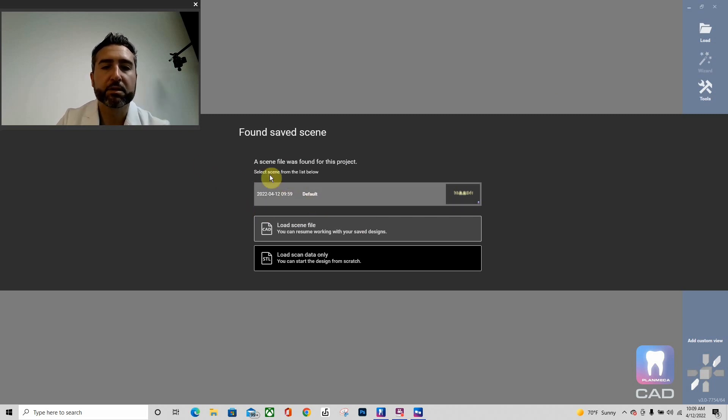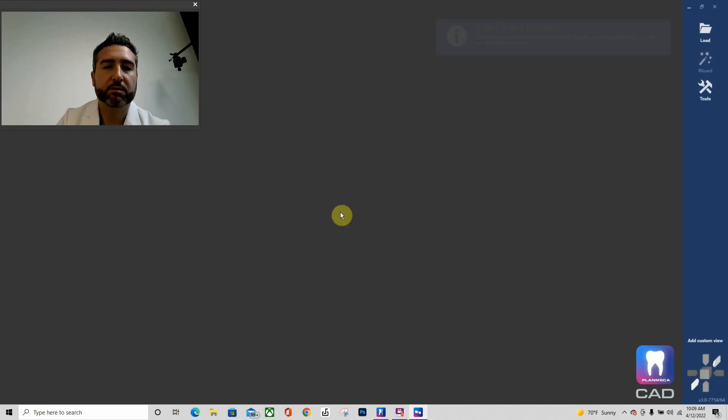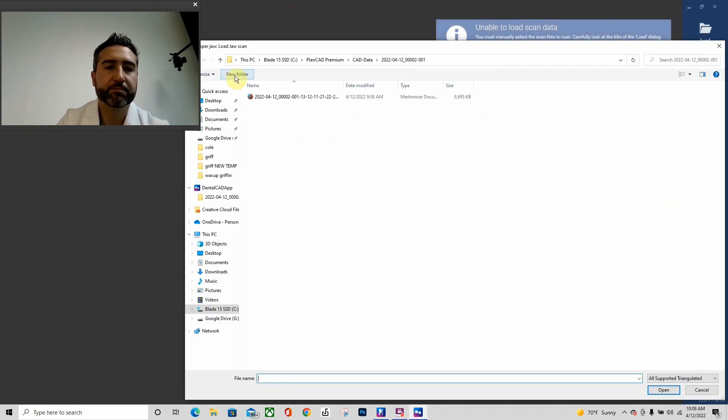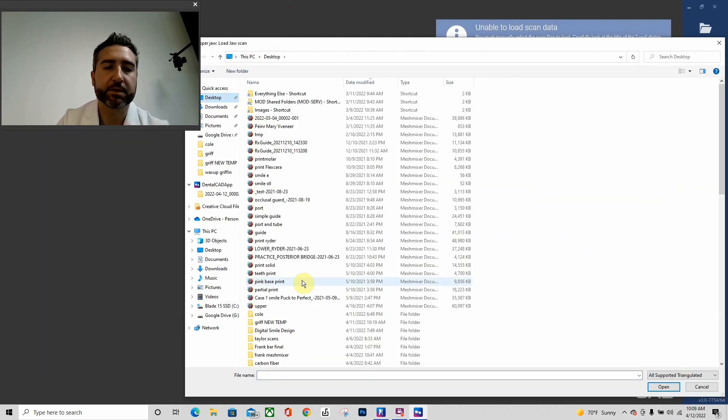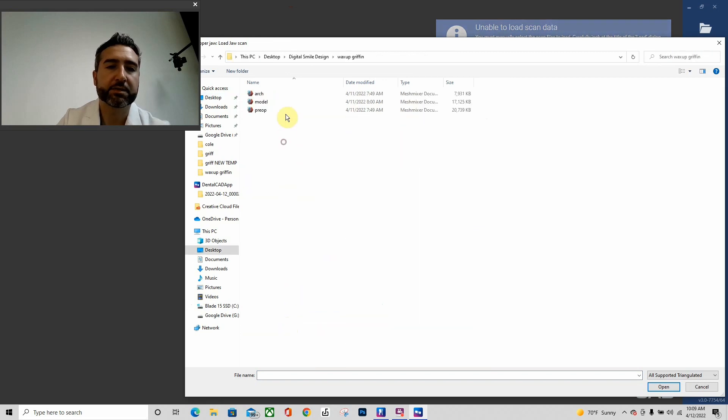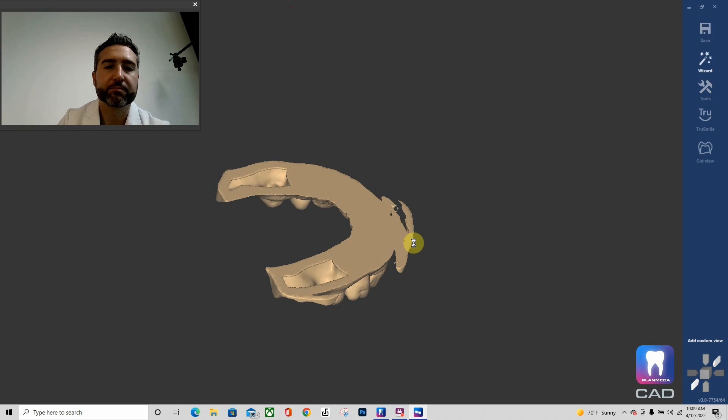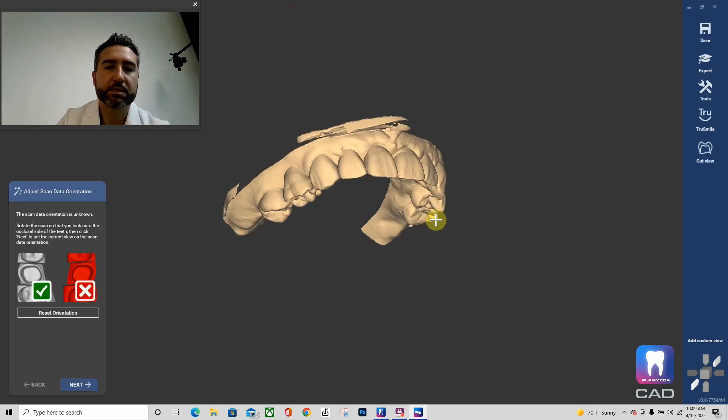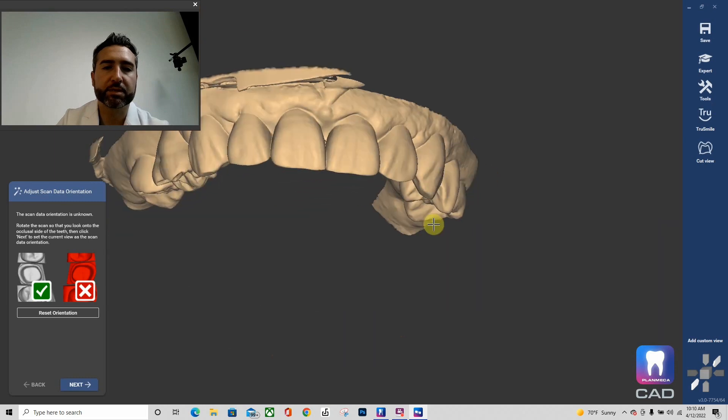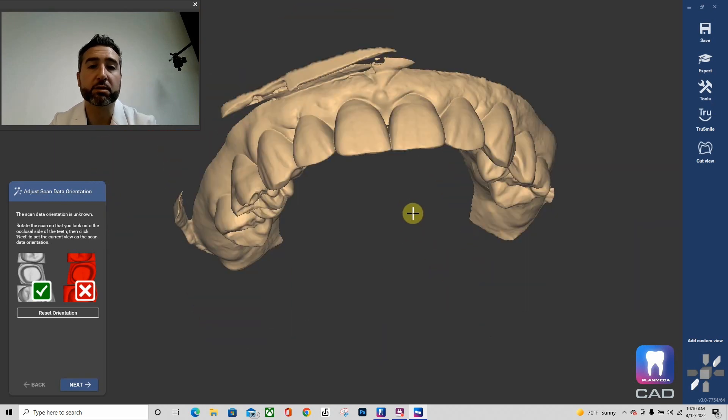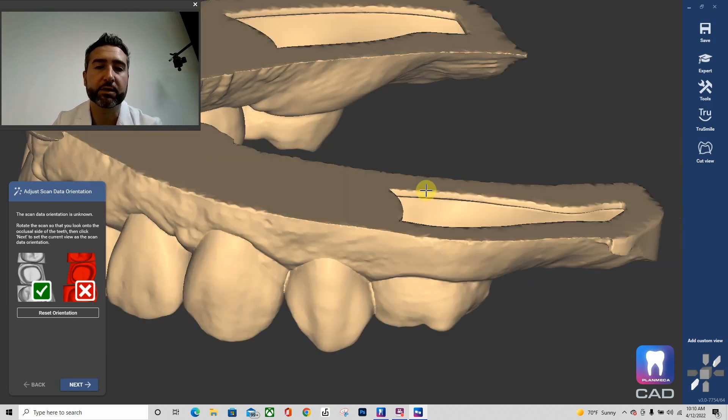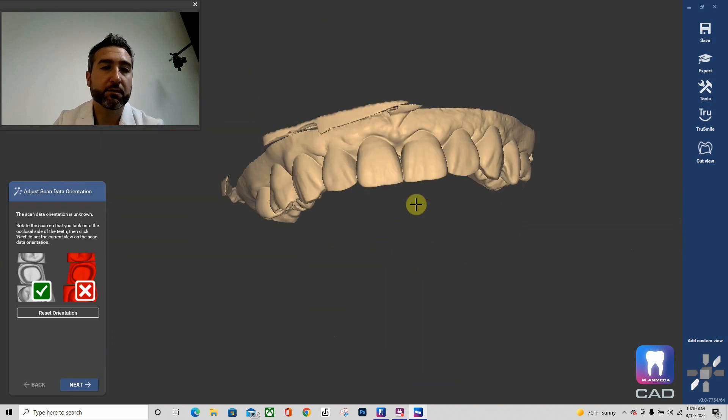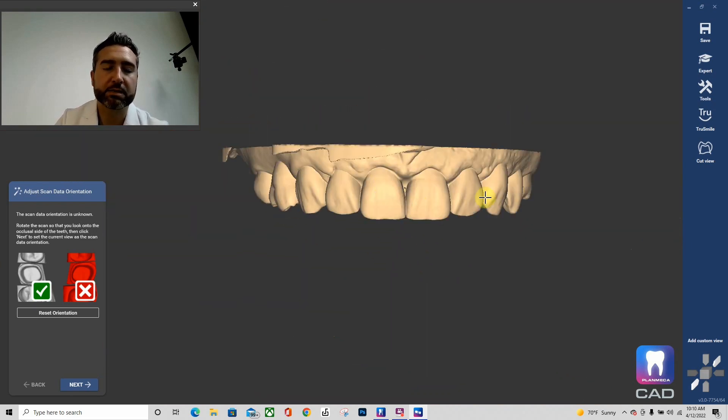All right, so I'm going to actually load a fresh model here. Let me see if I could find... yeah, here's a wax-up that I have right here. Nice wax-up. This wax-up is a solid printable model here, and that's what you want. You don't want any hidden shells anywhere in the model, any folded meshes. You want a solid nice model like this.